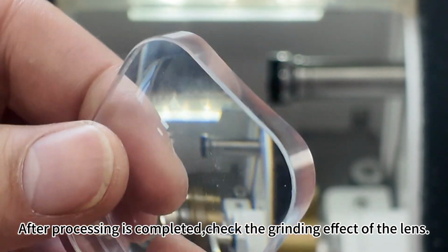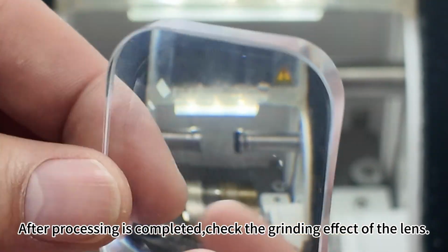After processing is completed, check the grinding effect of the lens.